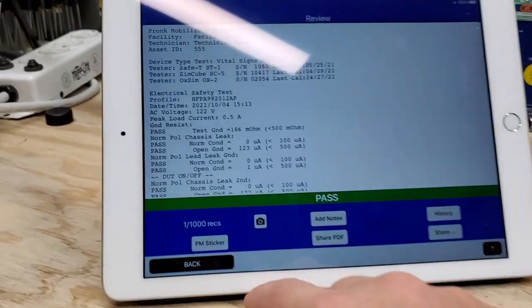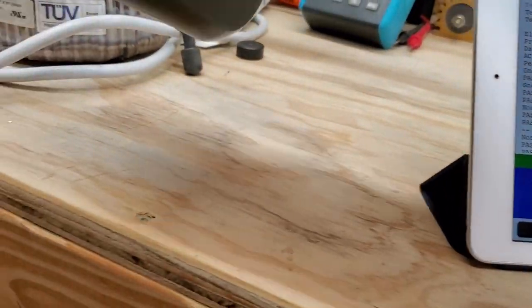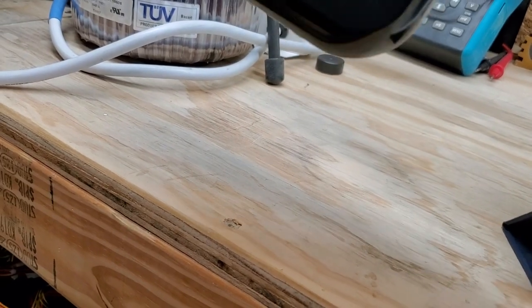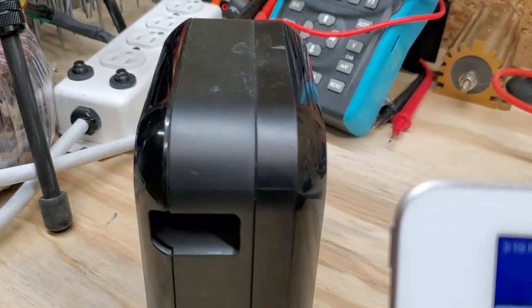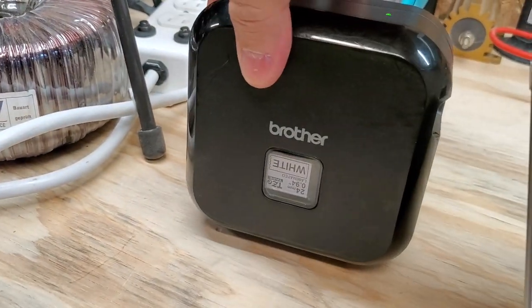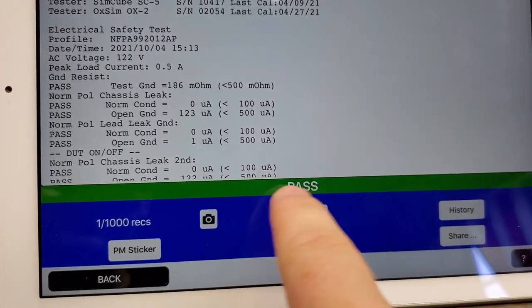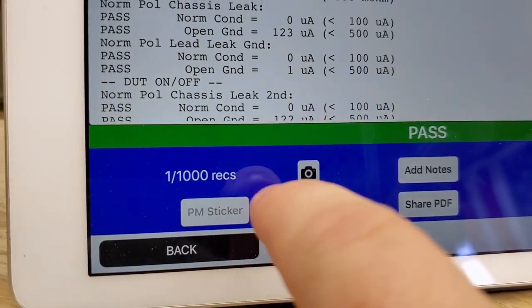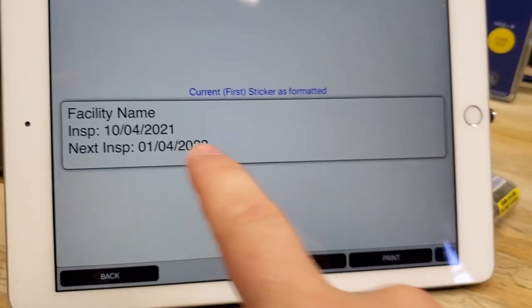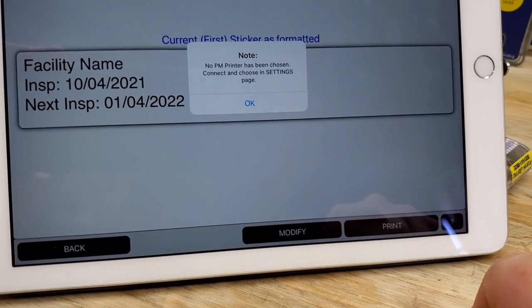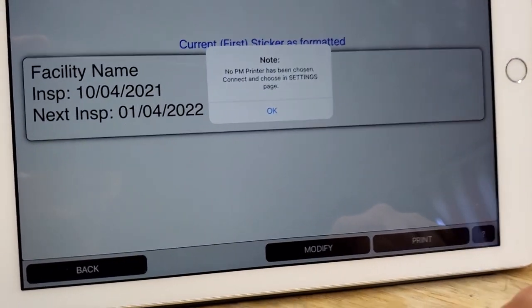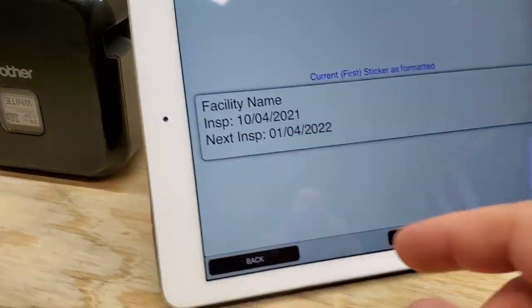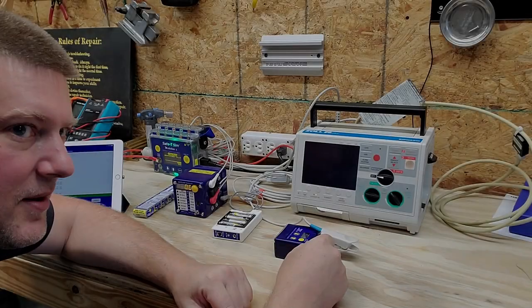This is one of the cool things I wanted to tell you about. Once it completed, it says pass. There's a little thing that says PM sticker. Normally you can customize that. I showed you the menu and settings to do that. I click print. Obviously that needs to be set up in here. I think you get the point.